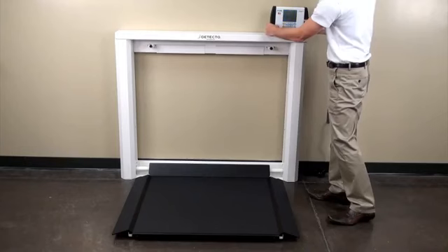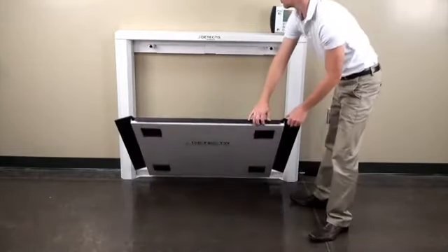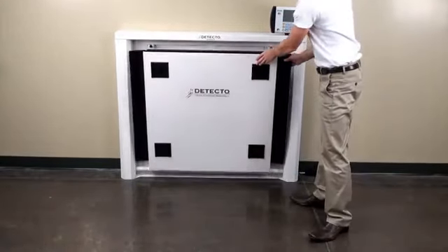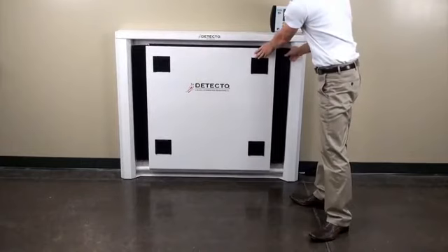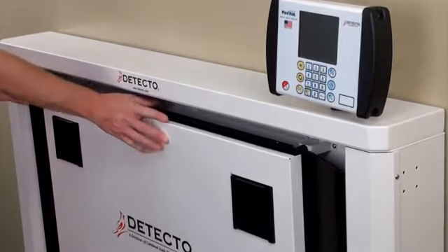After you're finished weighing, simply raise the platform and the gas spring lifting mechanism will take over and return the platform to its vertical compact position, snug against the wall. No heavy lifting is required.